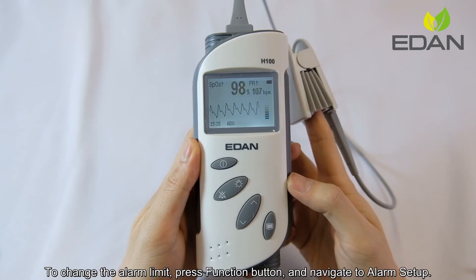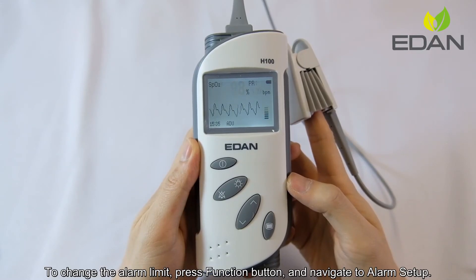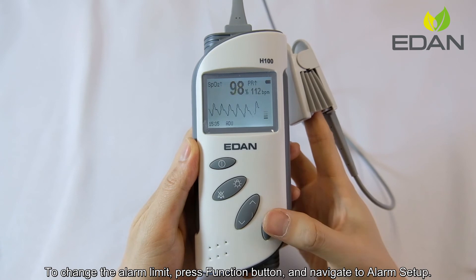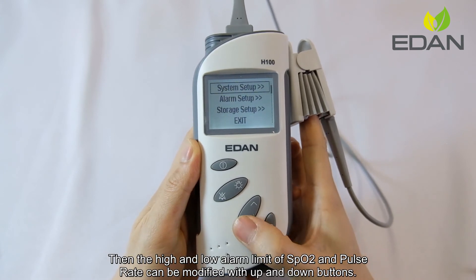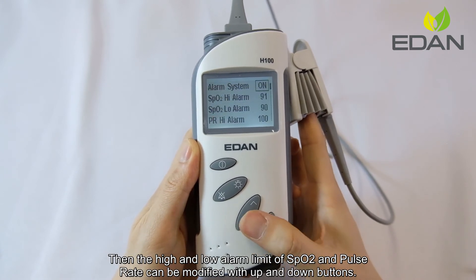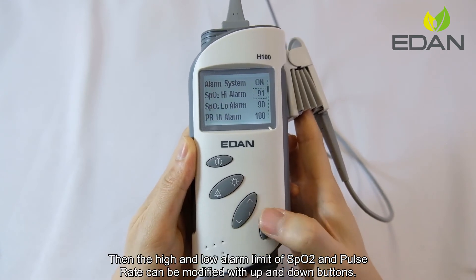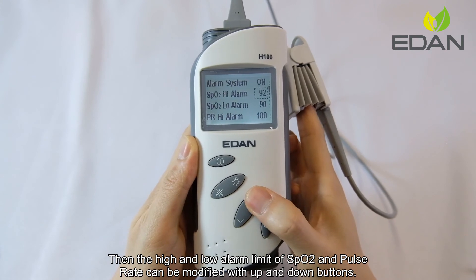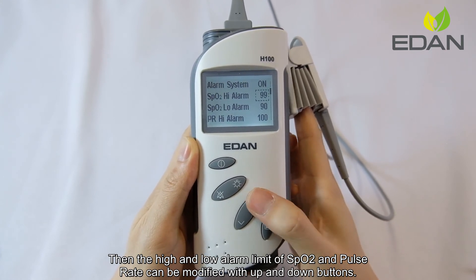To change the alarm limit, press the function button and navigate to alarm setup. Then the high and low alarm limits of SPO2 and pulse rate can be modified with the up and down buttons.